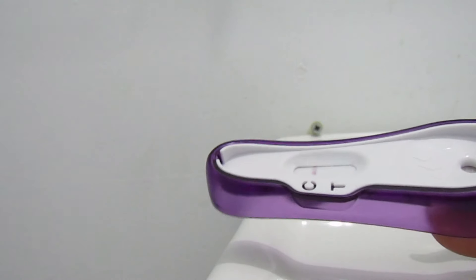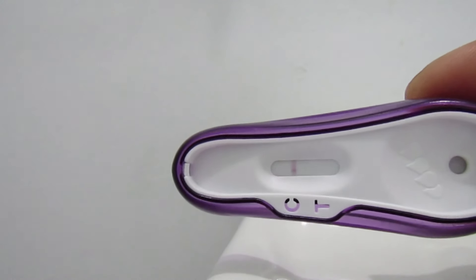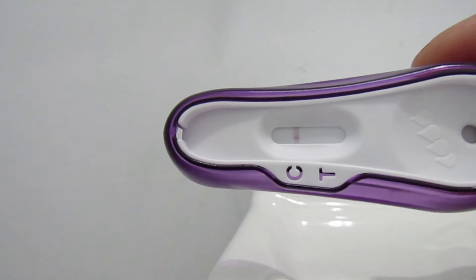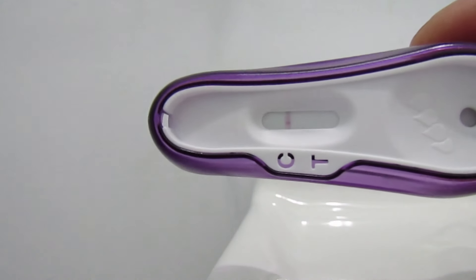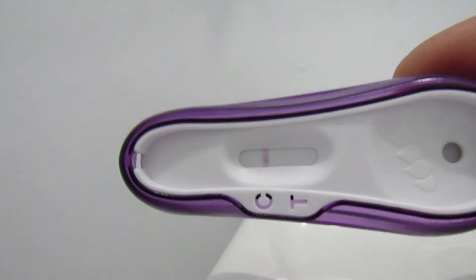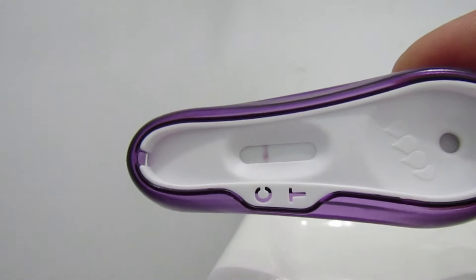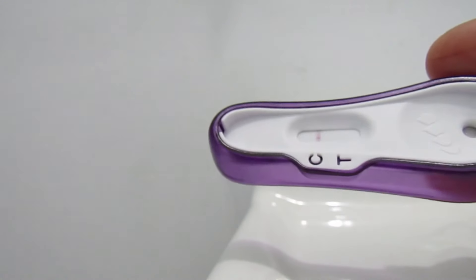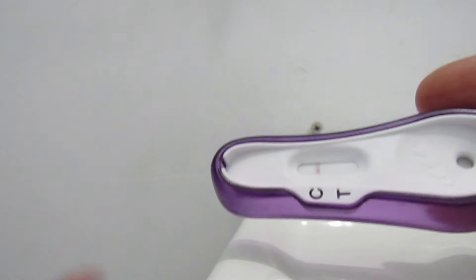But I can see that, so then when I turn it back over and look in that same area, I'm not really seeing anything. Maybe like last time, it's not completely white, but there's no line of color there either. I think it's just like a shadow that gets cast from that area where the line is supposed to be.